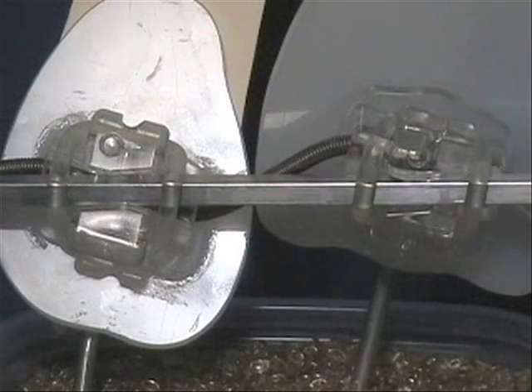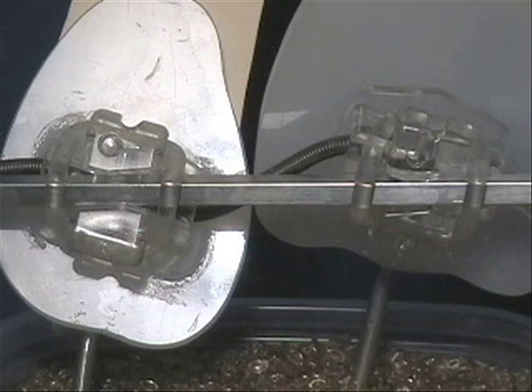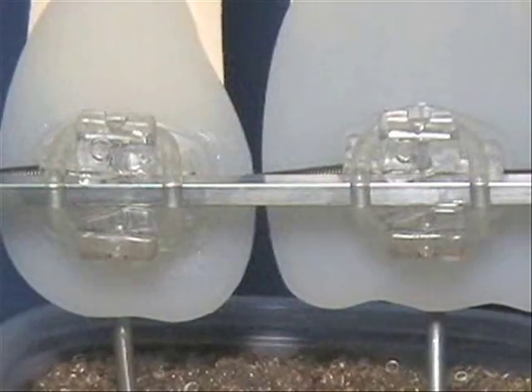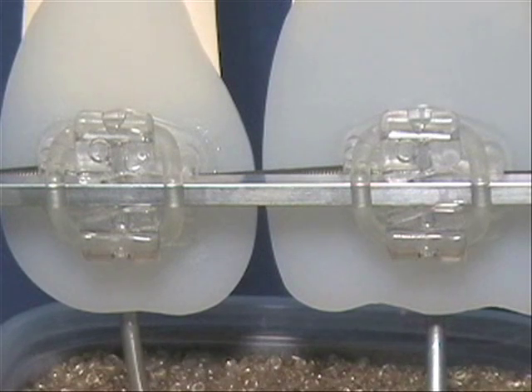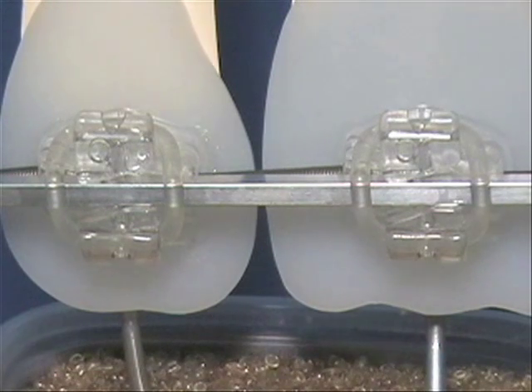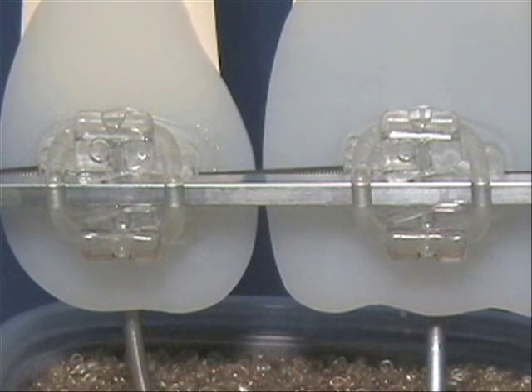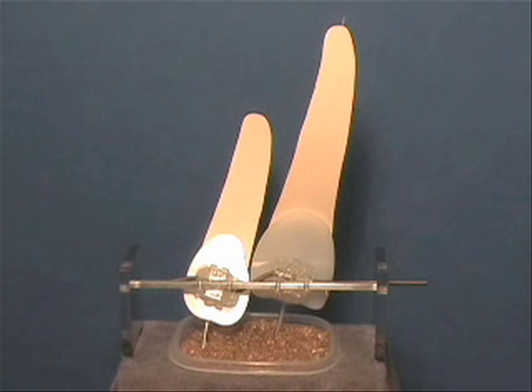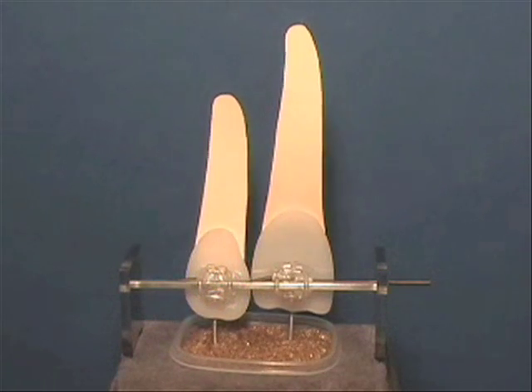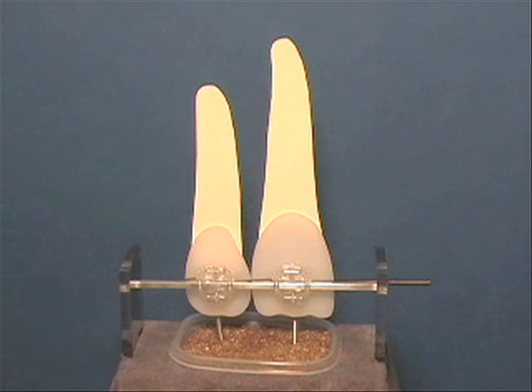A close-up view clearly shows the Kesling slot in action. As the tooth uprights, the flat finishing surfaces come into full contact with the upper and lower surfaces of the rectangular arch wire. The nickel-titanium wire can be seen in the deep tunnel as it powers the uprighting. Note that the edgewise arch wire is not deflected — it remains undisturbed and provides maximum vertical and horizontal control. Patient comfort is maximised and the uprighting forces are extremely light, being generated solely by the nickel-titanium wire.